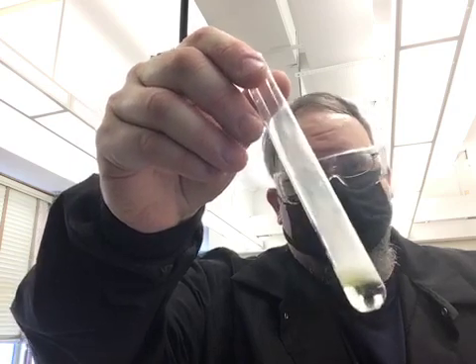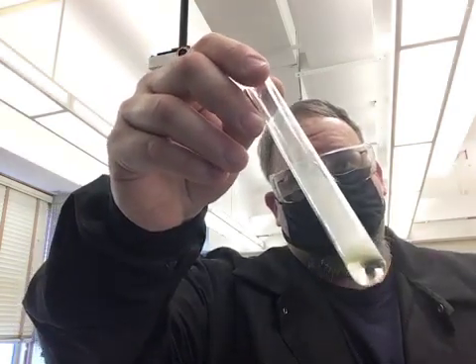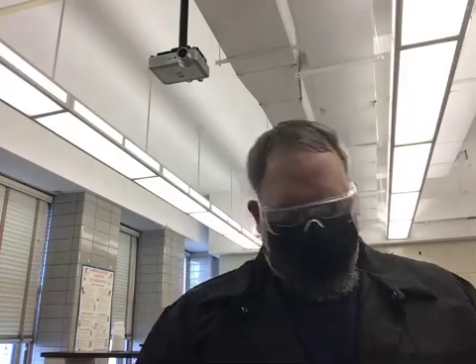All right, so again, you want to look back to the result we got for albumin itself and use that as the reference to judge whether the normal urine sample, unknown A, and unknown B have albumin associated with them.